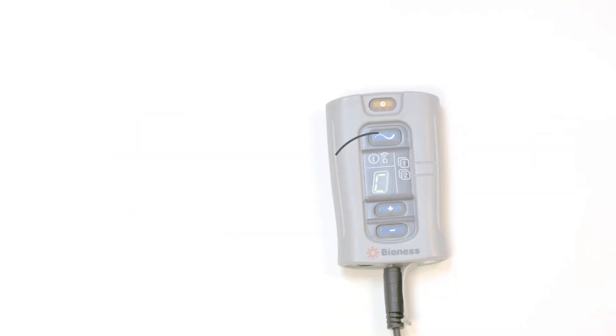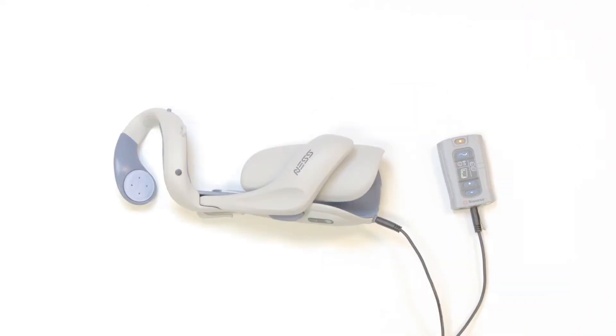After a moment, the letter C will appear on the control unit. This means the control unit has successfully paired.